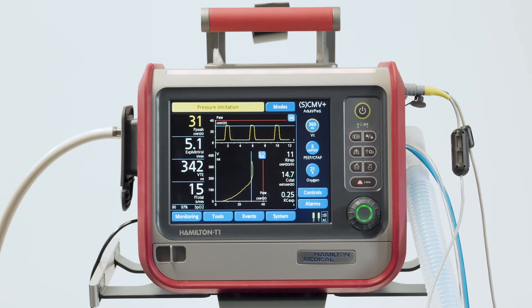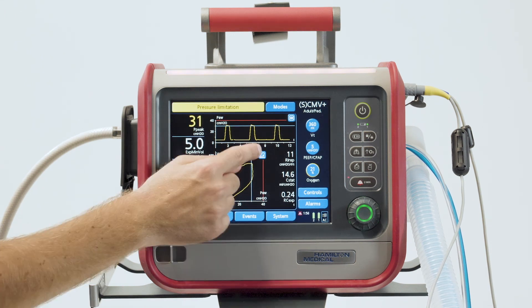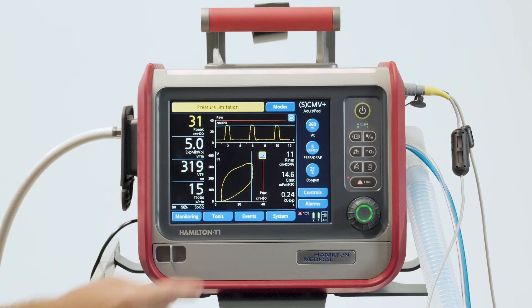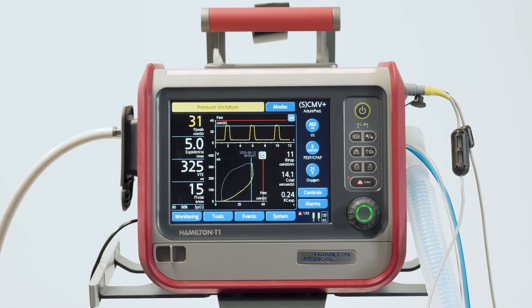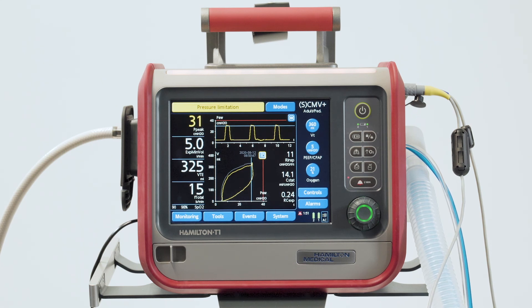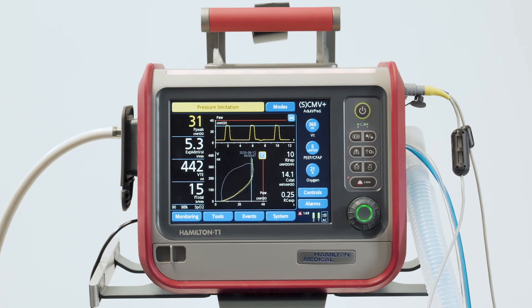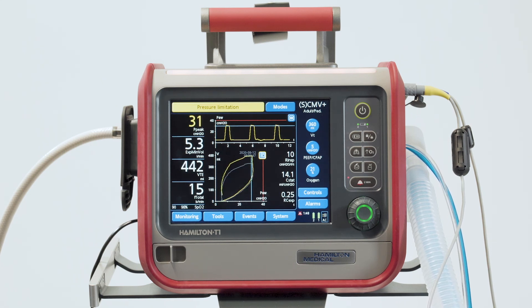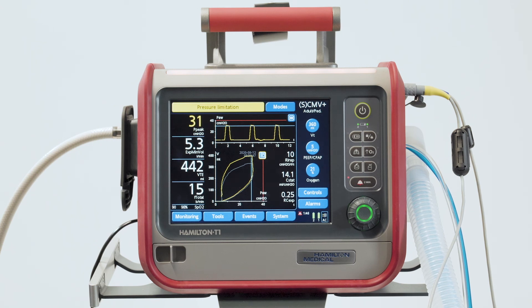With each loop displayed, you'll see some additional information, like the current values for resistance and compliance, and the time constant. If you need to store the current loop curve, just touch the loop reference button, and the current loop will be saved along with the current date and time.